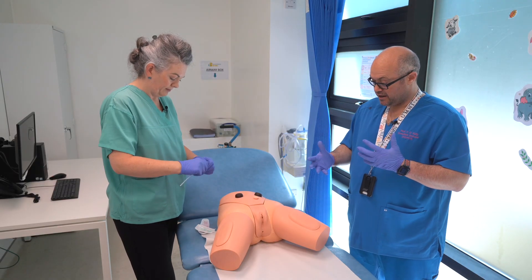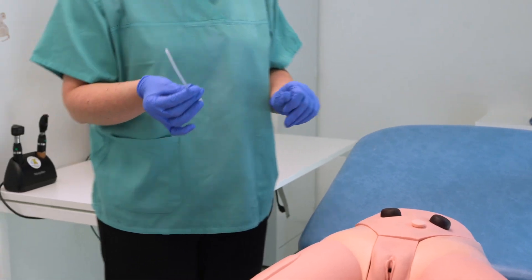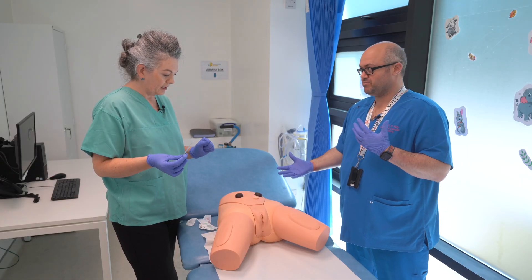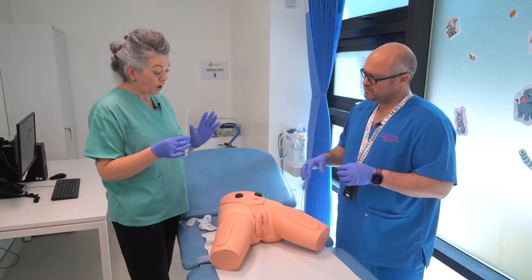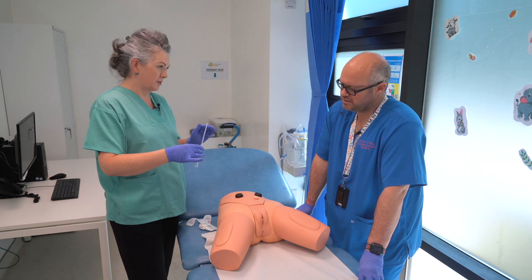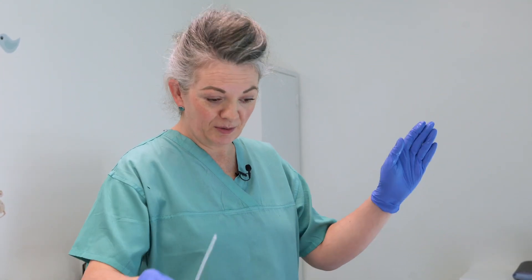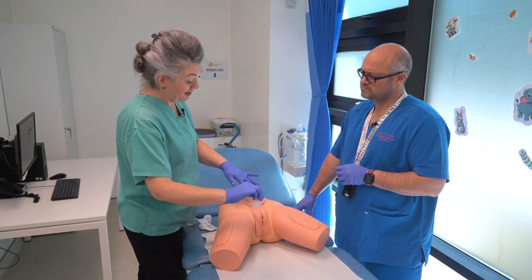For demonstration purposes the fluid is water rather than urine. Catheters also come in all shapes and sizes — you can get catheters with drainage bags attached, which keeps everything clean on the bed; you just empty it down the toilet and discard. For children in nappies, ideally let the urine drain into the nappy and change as normal, as it's much harder to catheterize and also catch urine in a receptacle, especially when you're learning and your concentration needs to be on placing the catheter correctly.